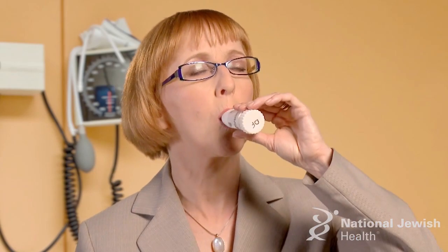Let's see what that should look like. We have already loaded our medication and we are ready to go. Repeat for each dose you have been told to take, starting with the loading of the medication. Always rinse your mouth with water and spit it out after using the Flexhaler.